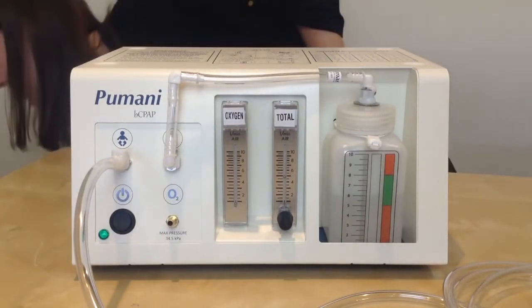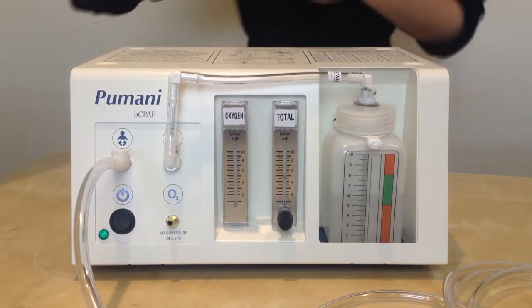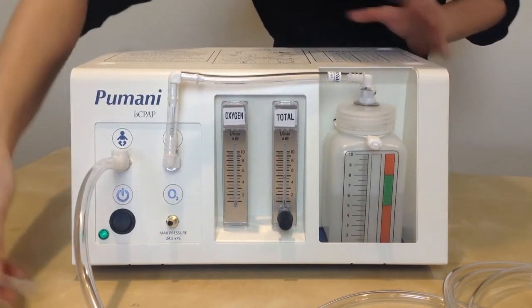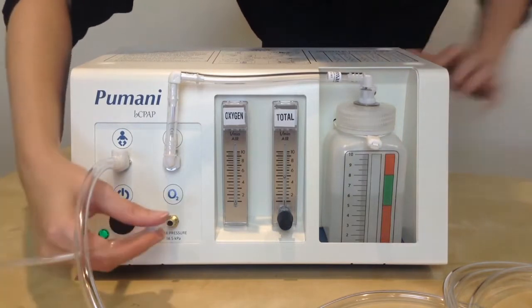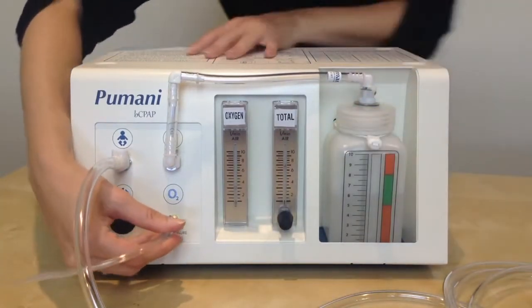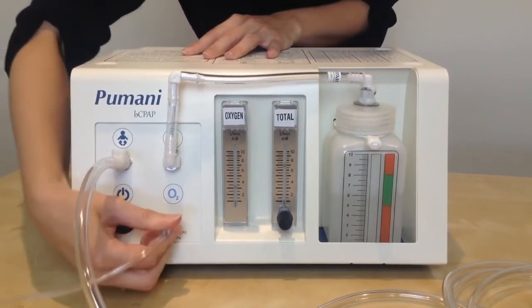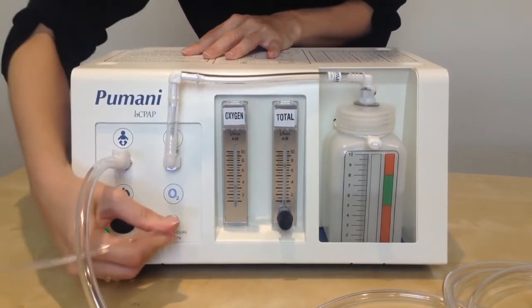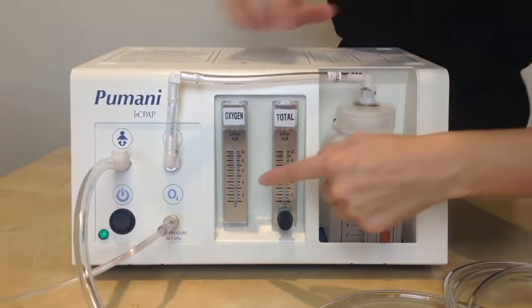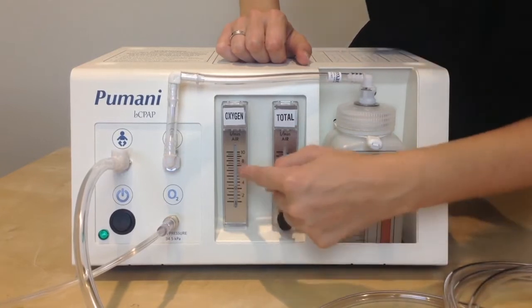I will take my oxygen tubing from the concentrator and set my concentrator to three liters per minute. I will connect it here at the oxygen port. Make sure it is firmly on the oxygen port, and then you will confirm that the oxygen flow is three liters here.